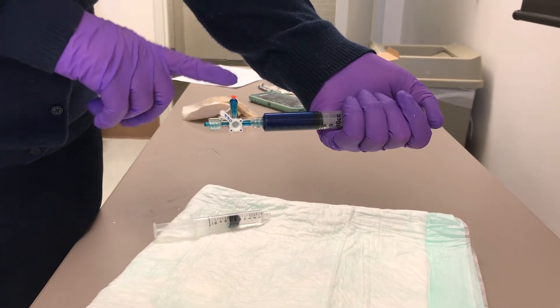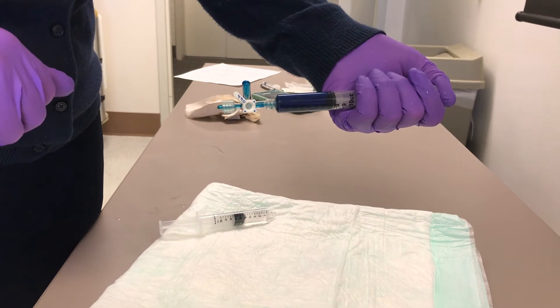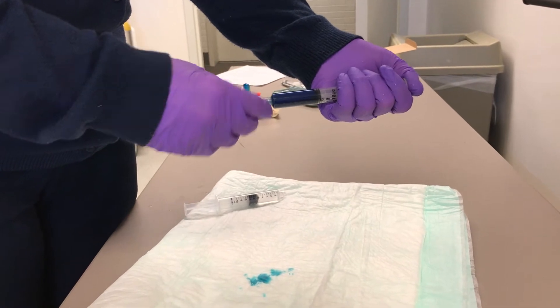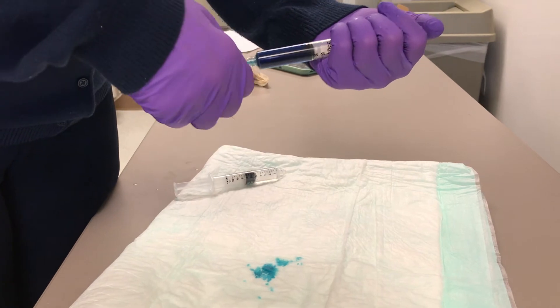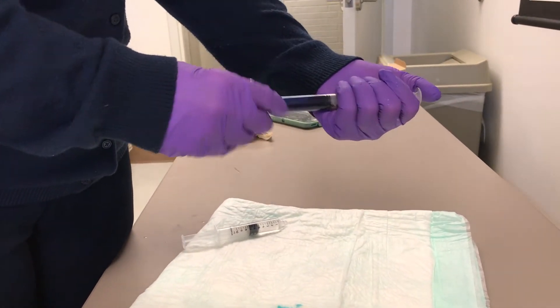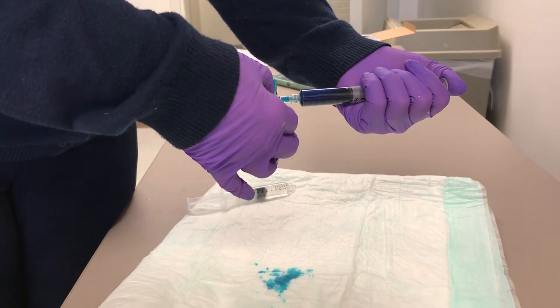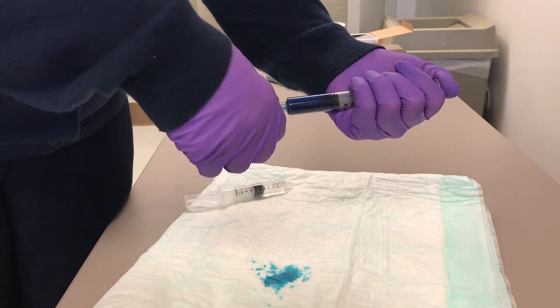Notice that nice little bubble here — that bubble is ensuring that there's no entraining of air. If you leave one side open you might lose a little and you can entrain air sometimes. So again, when priming your stopcock, it doesn't matter which one you do first, but prime all the way on one end.